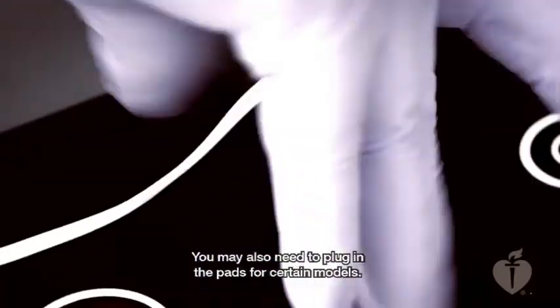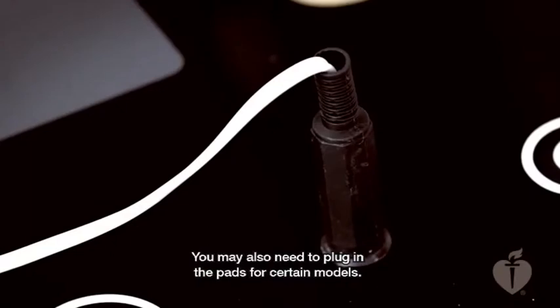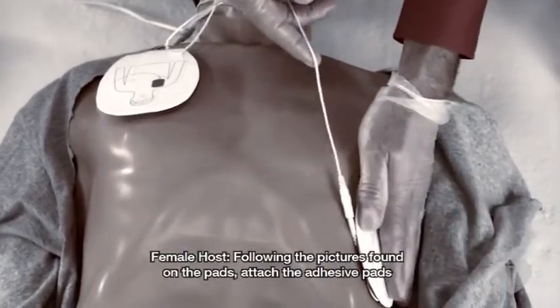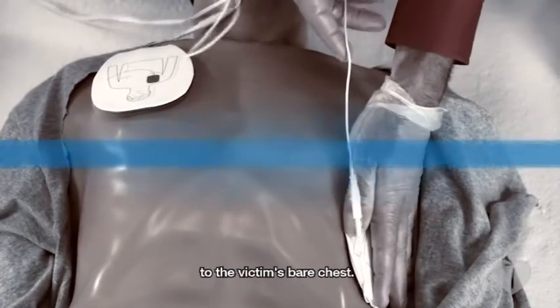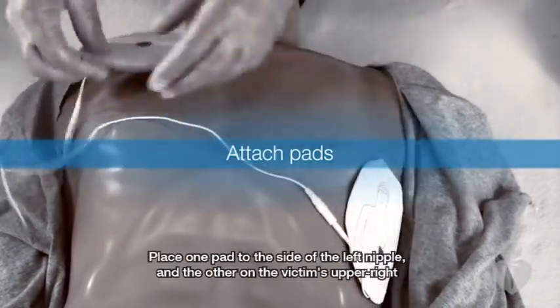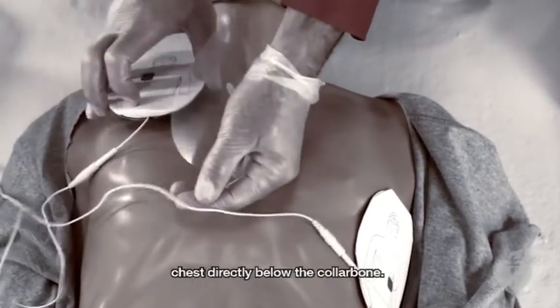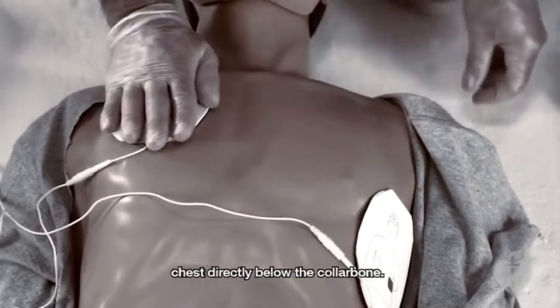You may also need to plug in the pads for certain models. Following the pictures found on the pads, attach the adhesive pads to the victim's bare chest. Place one pad to the side of the left nipple and the other on the victim's upper right chest directly below the collarbone.